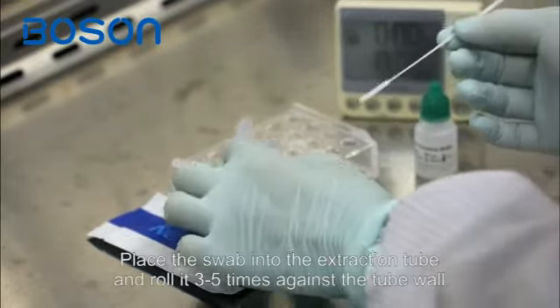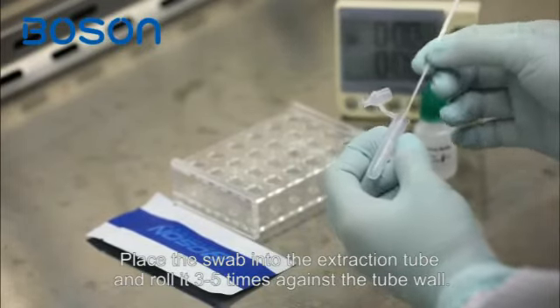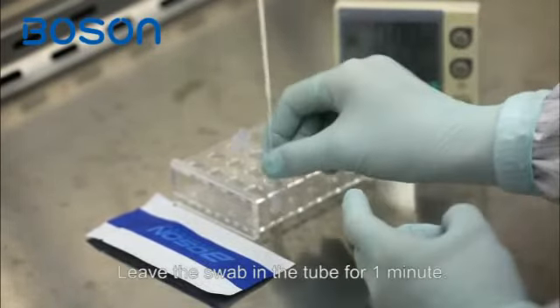Place the swab into the extraction tube and roll it 3-5 times against the tube wall. Leave the swab in the tube for 1 minute.